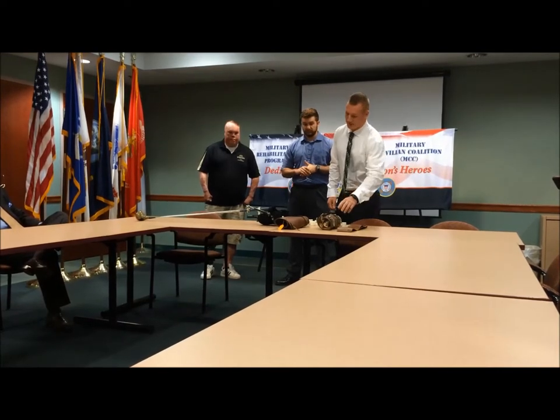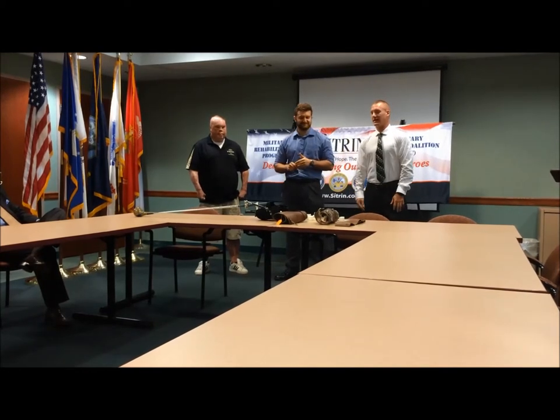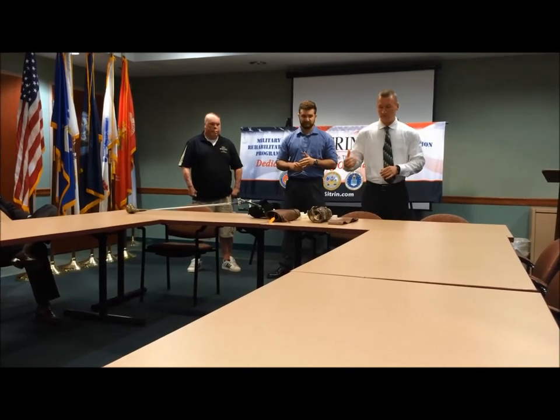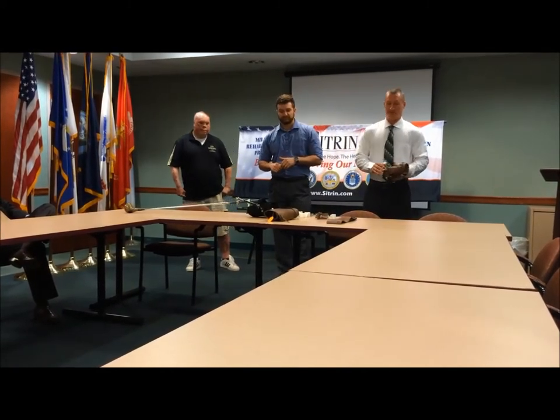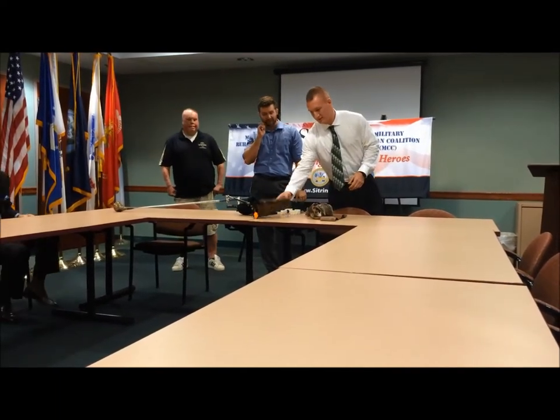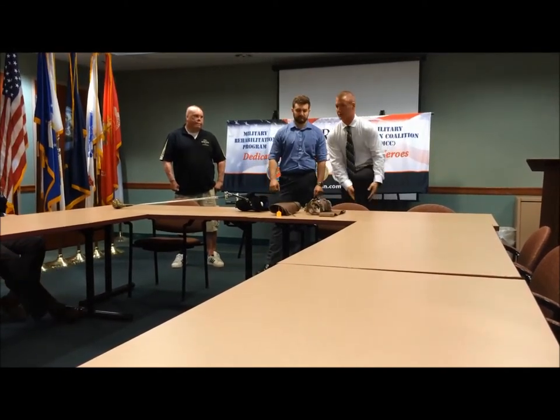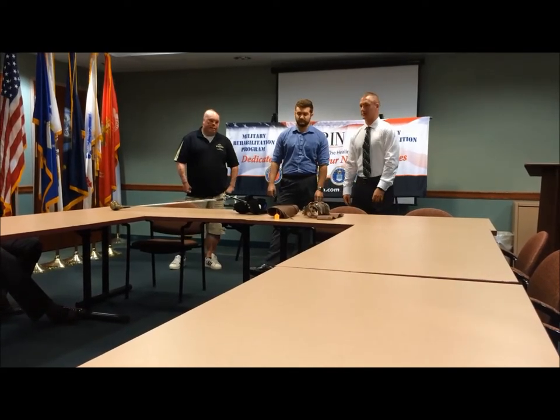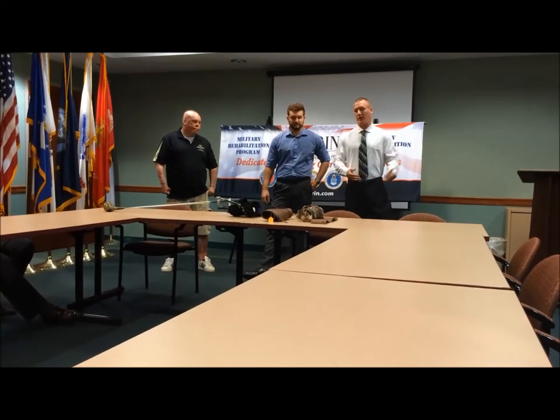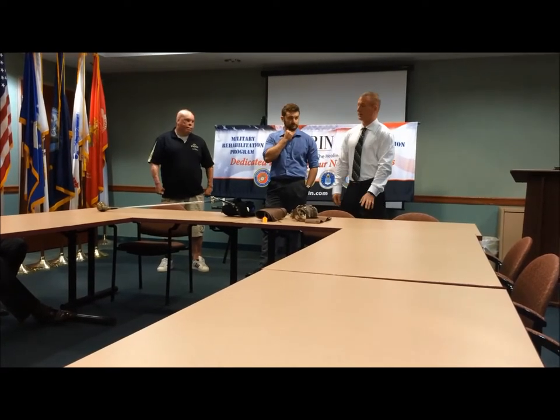The whole project — I've been asked a couple of times how much it cost, like thousands of dollars — but we actually spent less than $300. Through innovation, we ended up using ski clamps from boots that were sourced on Craigslist for free. This cuff right here is actually a World War II officer's cuff for riding horses; it goes around the leg and was about $10 at the A&T store in Westmoreland. We used the skills and knowledge we acquired at the institution, and our innovation, to develop this product.